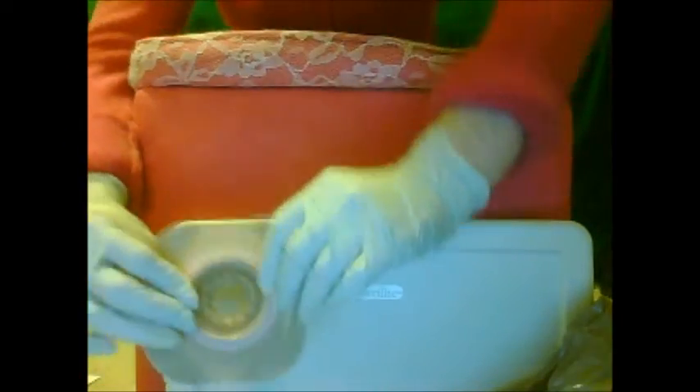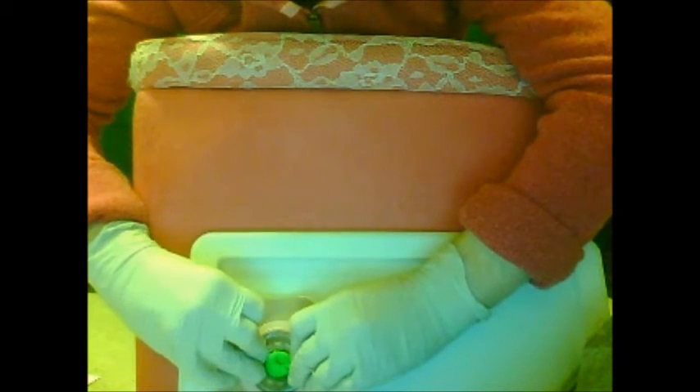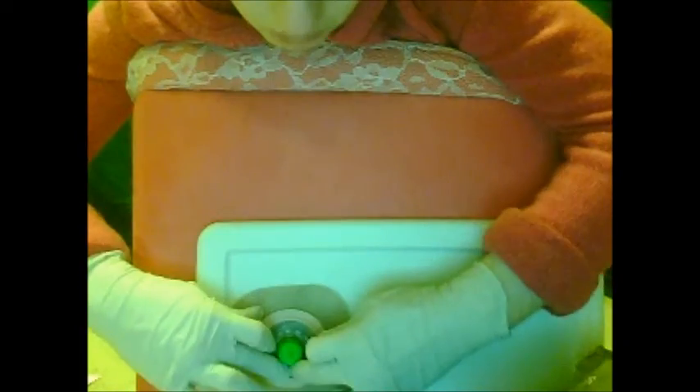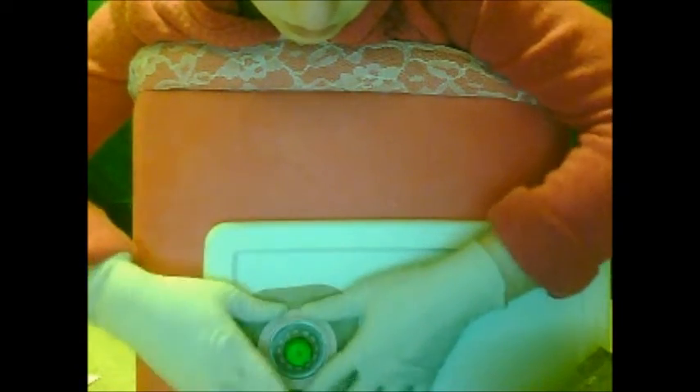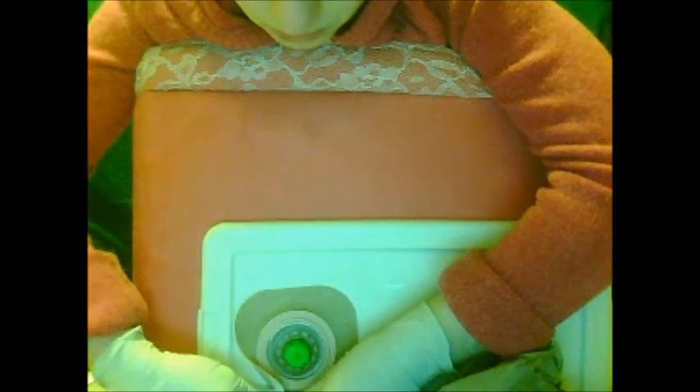You still want to have that cloth underneath your stoma. Set it on like that — looks like a green tomato. Mine looks like a little red tomato that shoots up poo. Just gently slap it on there. Peel off the other parts of backing — the side backing. Smooth it out; you want to make sure it's firmly on your skin.